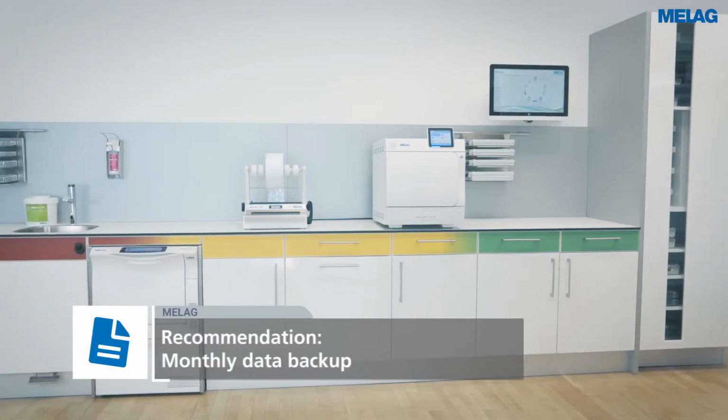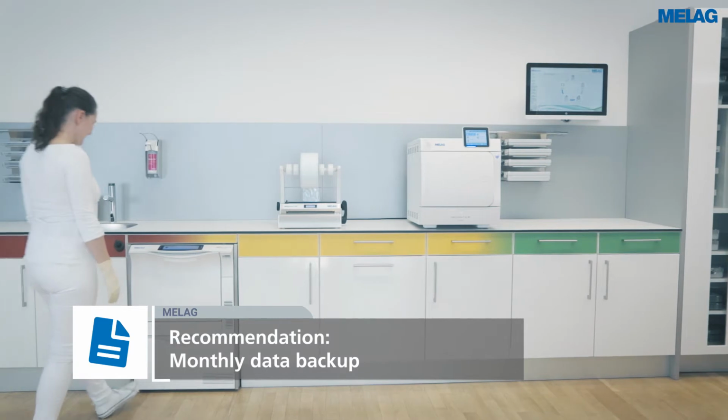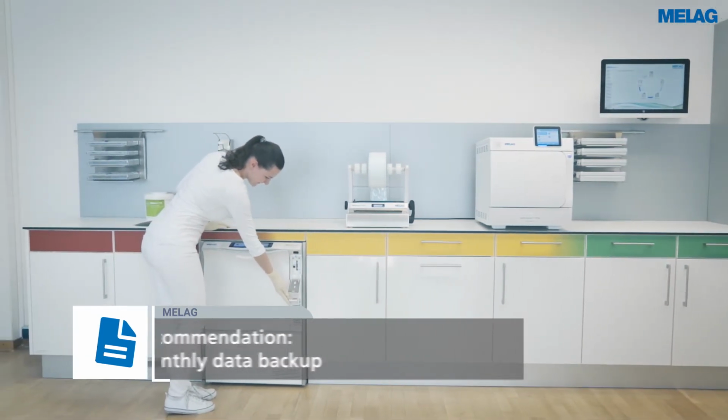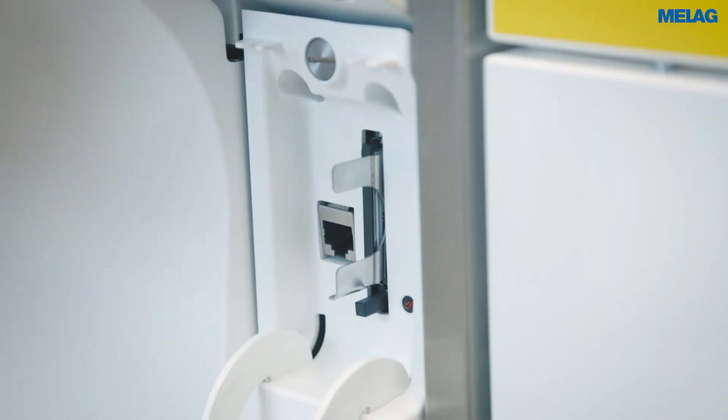We recommend outputting the CF card on a monthly basis for data backup purposes. Please remove the card by pressing the ejection button.